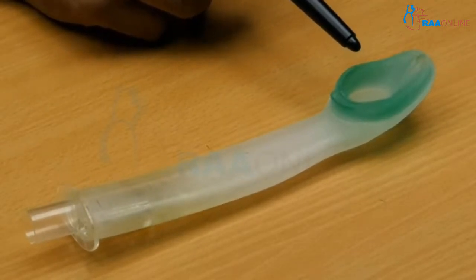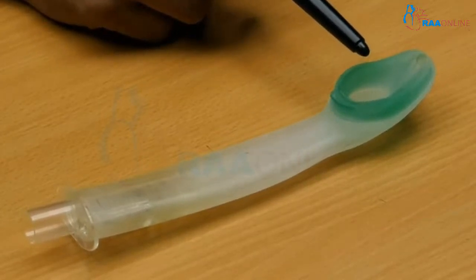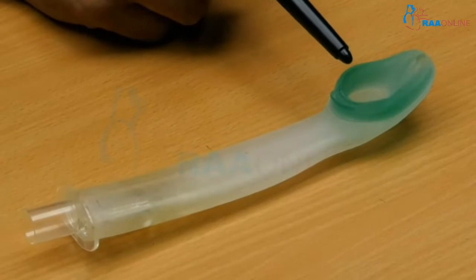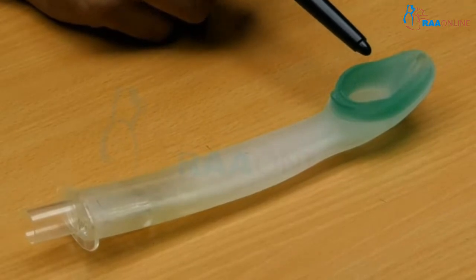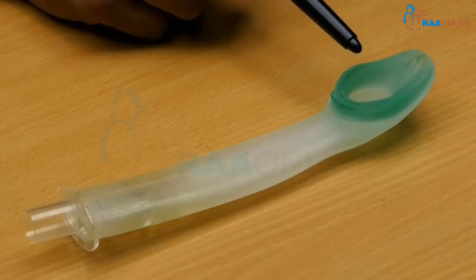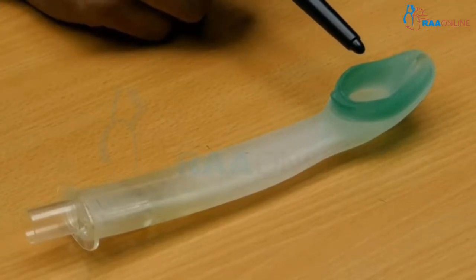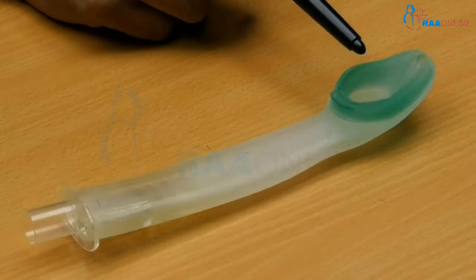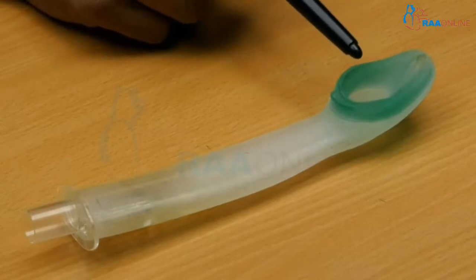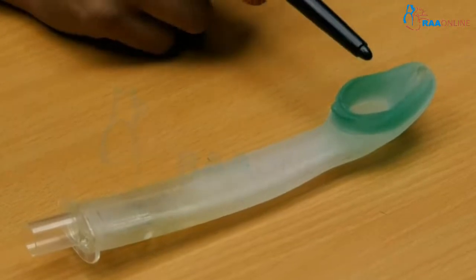Once we insert the device and it occupies the proper perilaryngeal space, because of the warmth or body temperature, it molds according to the perilaryngeal structures. After some point of time, it provides an adequate seal like a cuffed device. So there is no need to inflate air to prevent the leak around the perilaryngeal structures — that is a very important peculiarity. With this advantage compared to the classic LMA, the cuff mask of this IGEL is very small compared to the other supraglottic airway devices.